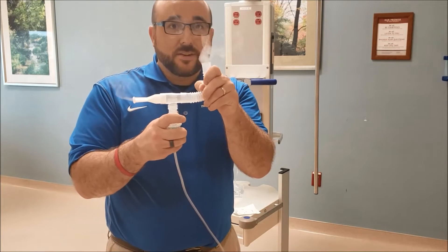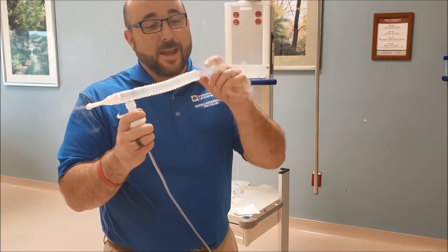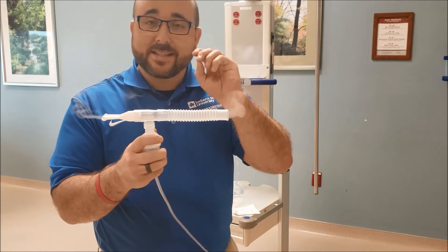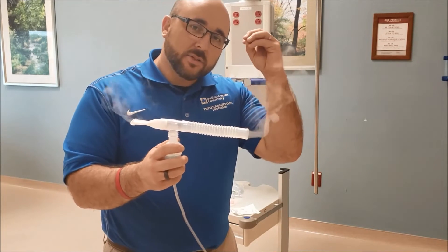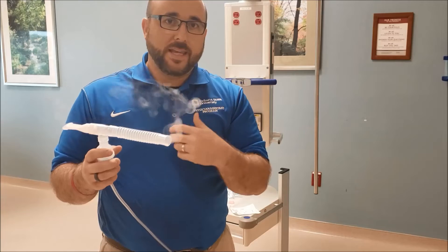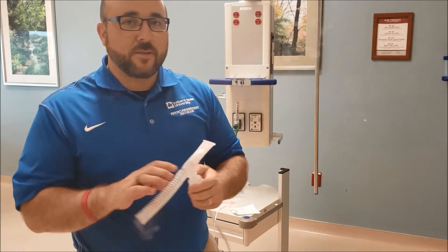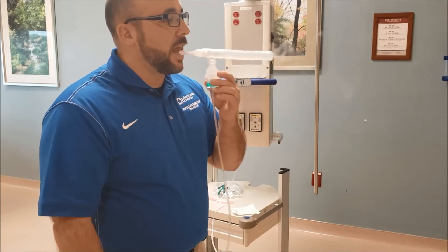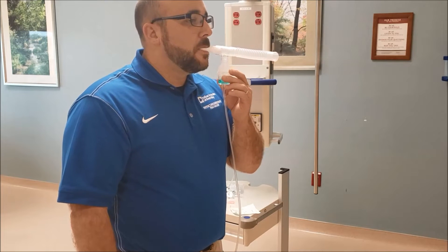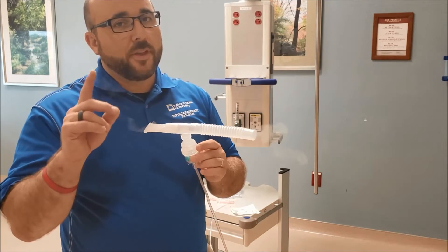This is not a mist, it's not vape — nothing like that. This is nebulized medication, and the particle size is three to five microns. That's really important because that's exactly what it takes to get to those areas right above your alveoli where it can bind to those muscles and loosen them up. And that's what all of our bronchodilators do. So if I hand this to a patient, this is the normal breathing pattern.